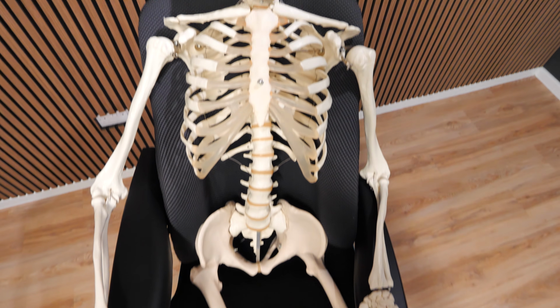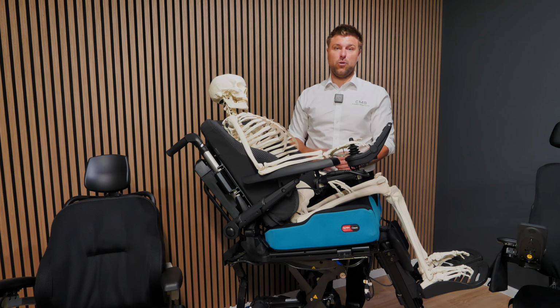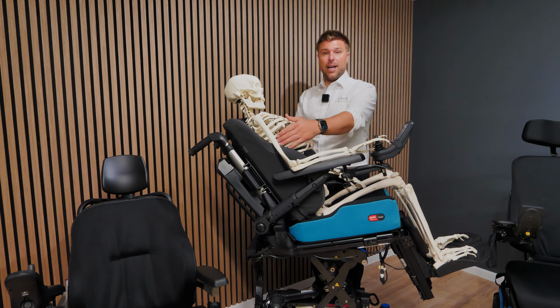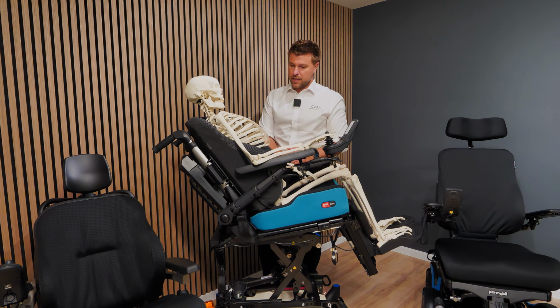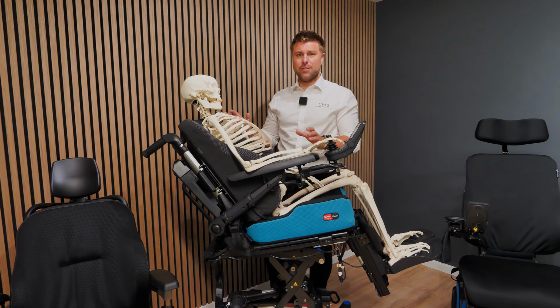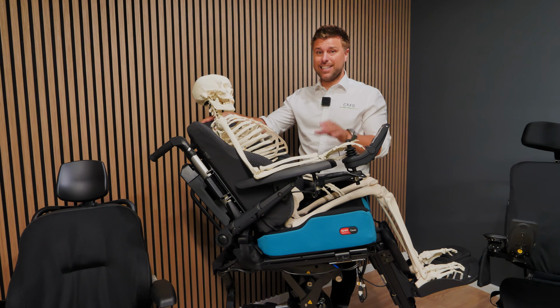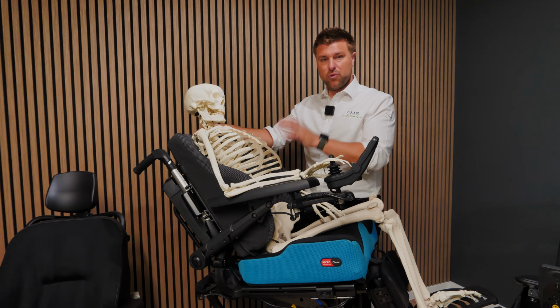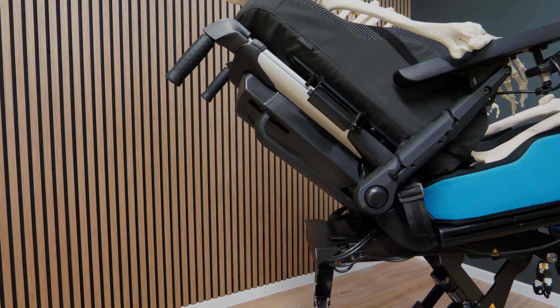If the laterals are far too low, and not positioned for a particular spinal profile that might need lateral support slightly higher up, or even offset if you have a scoliosis, that has a massive effect. So ensuring that it is prescribed correctly, along with the cushion, obviously they're all linked, is really important to consider. It's not just the angle.